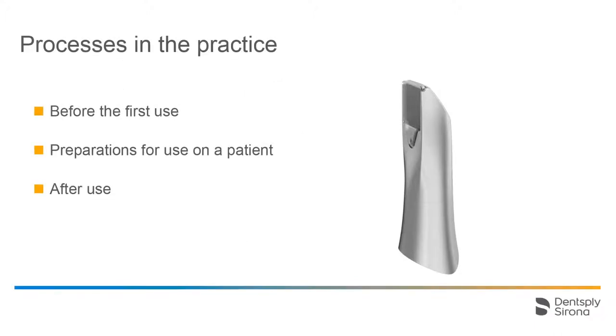In this video we will cover three different processes associated with this sleeve. The workflow after unpacking but before the first use, preparations for use on a patient, and the process after use.